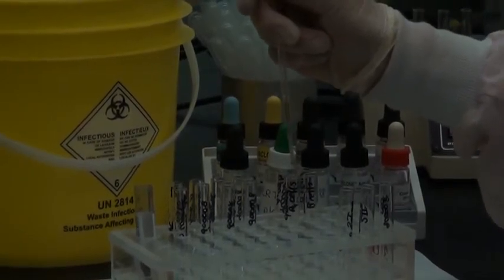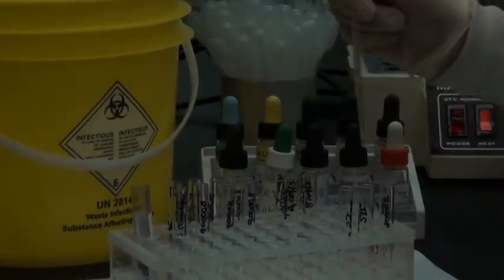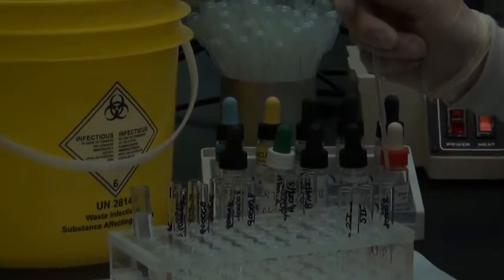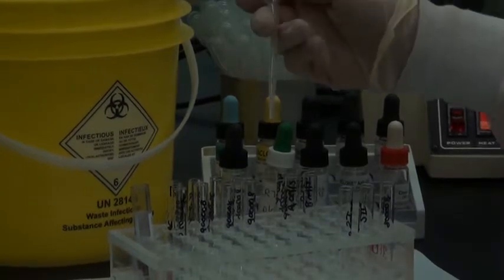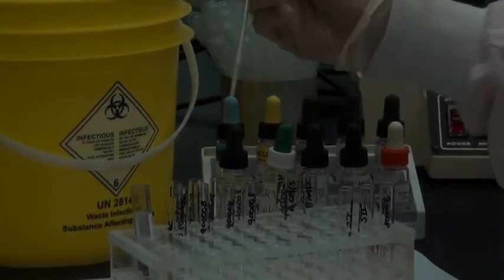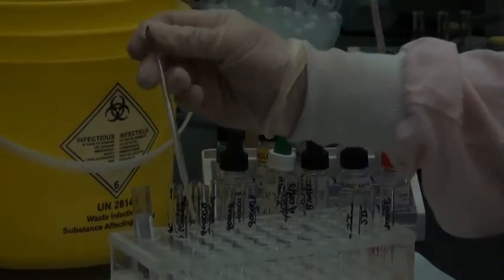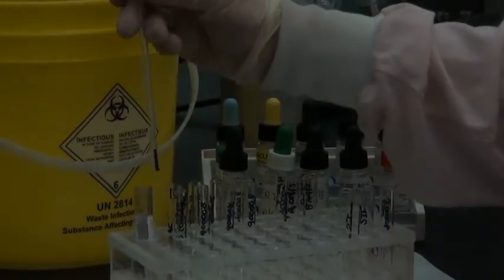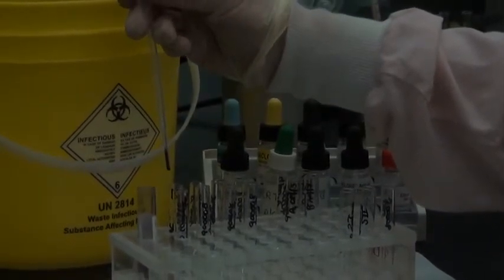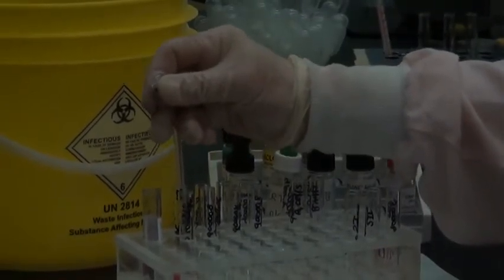So 2 drops into each of the reverse grouping tubes. Looks like I was a little short there, so I'll just pick up a bit more. Looks good. Then with this same pipette, I'm going to go and pick up some cells from the EDTA tube. So I've squeezed the bulb a little bit. I'm going down to the very bottom, grab a few cells, just what's in the bottom portion of the pipette, the narrowest portion, and rinse that into one of my 5%s.